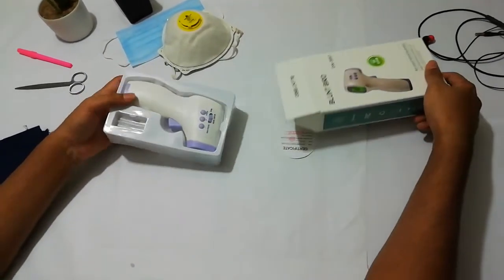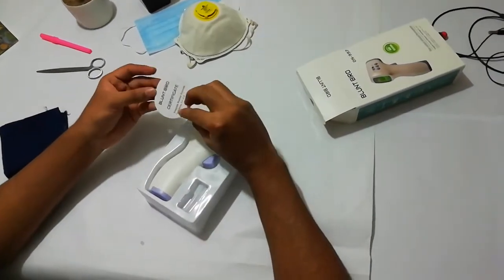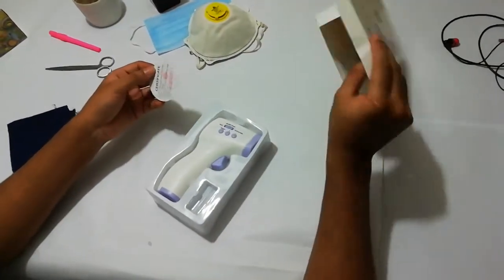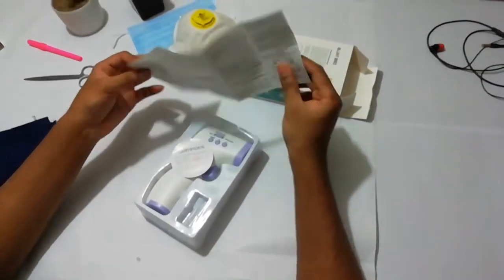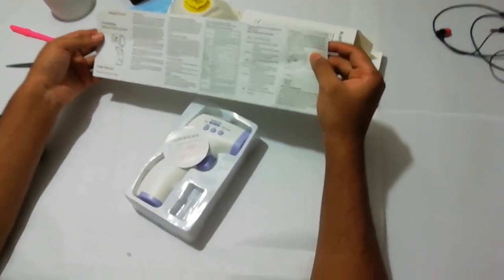First of all, I find here a warranty card. It shows the warranty of it. And another part I find here, it is a user tool that shows us how to use it.